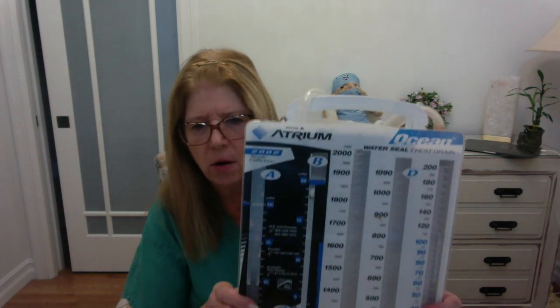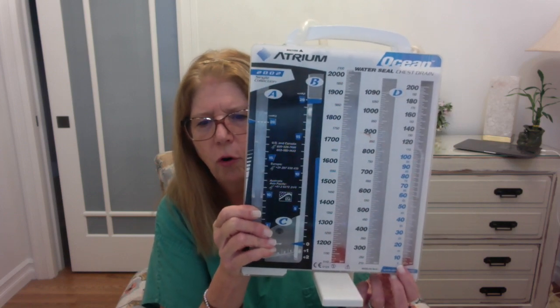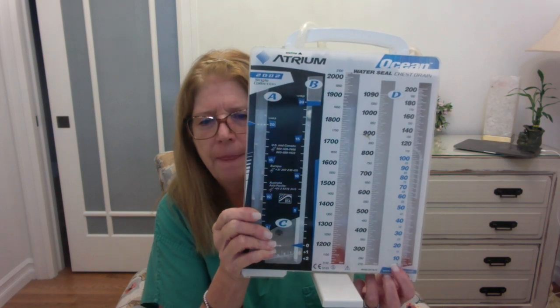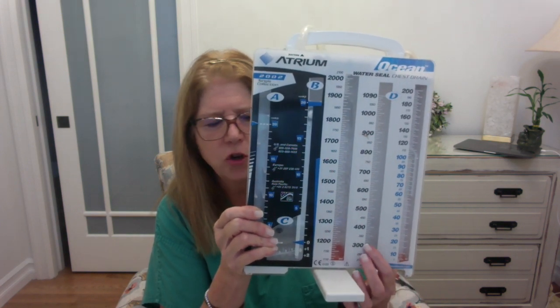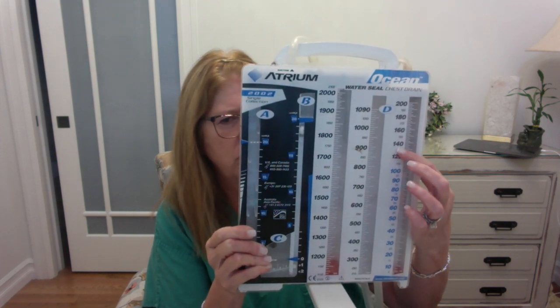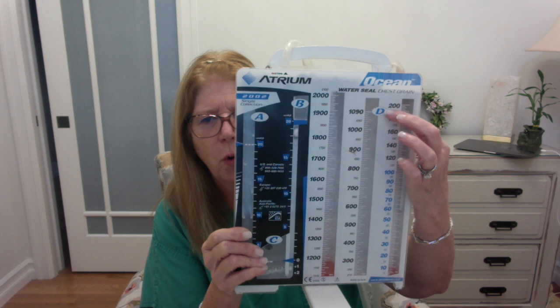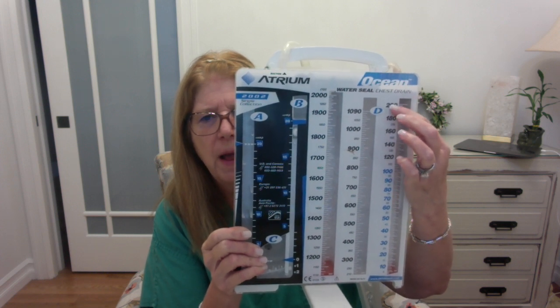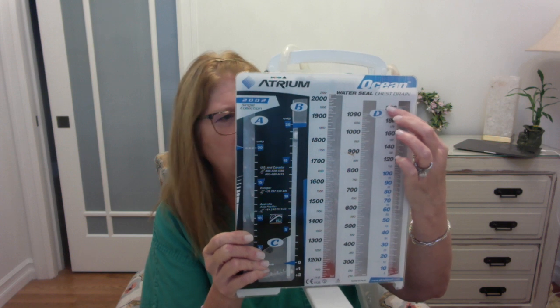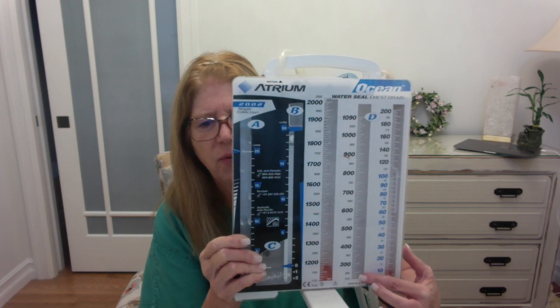And so what does that mean? Well, it means that we are going to be recording the drainage in here. And the way that this fills up, if you could see over here, we start off basically at 0. And then there are increments, okay? Initially the increments are in 10s, and then they start changing to increments of 20. And if the drainage reaches all the way up here at the 200, the fluid is now going to flip over into this chamber and start filling from the bottom.